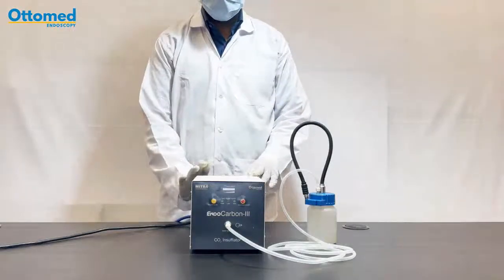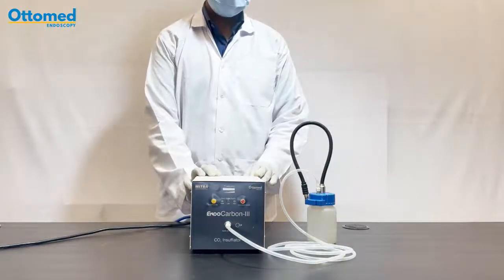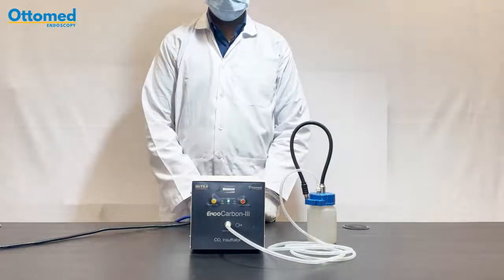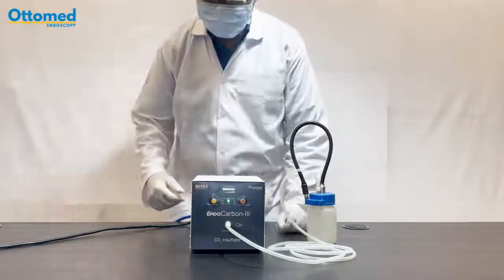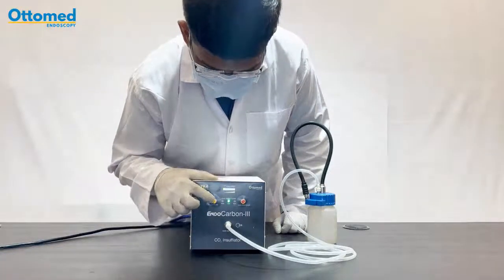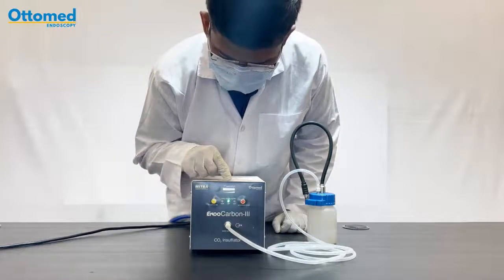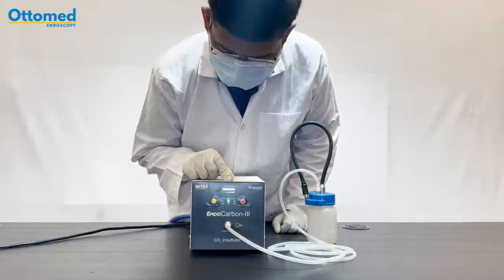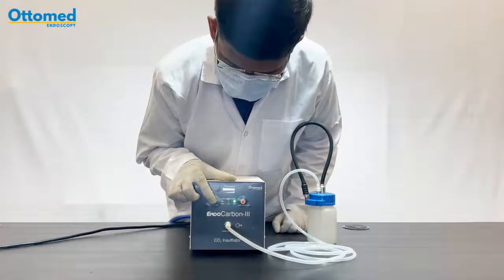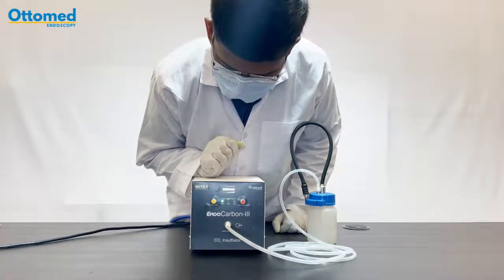Next, I am starting this machine. Here is the switch — switching on the machine. You can easily select a flow. This indicator shows the gas input pressure. Now I am keeping this flow rate on point.